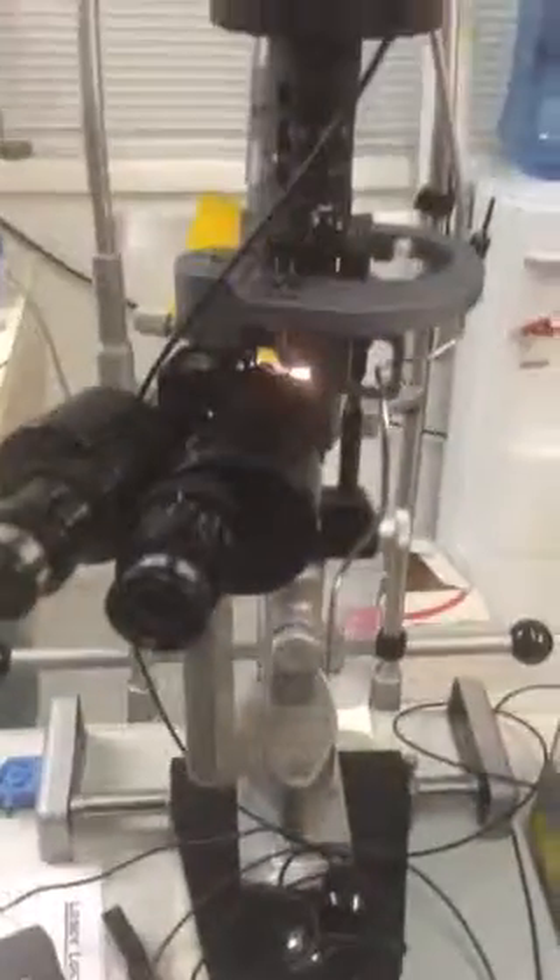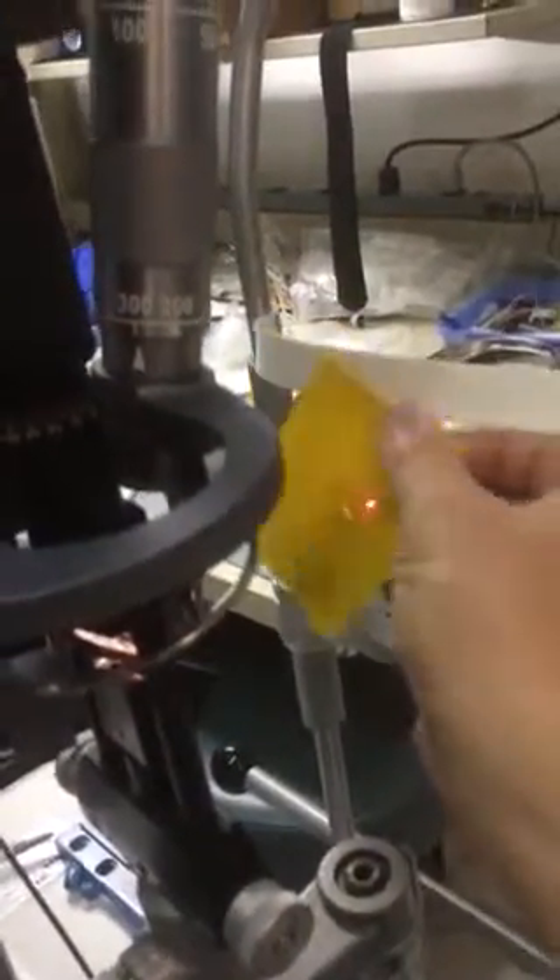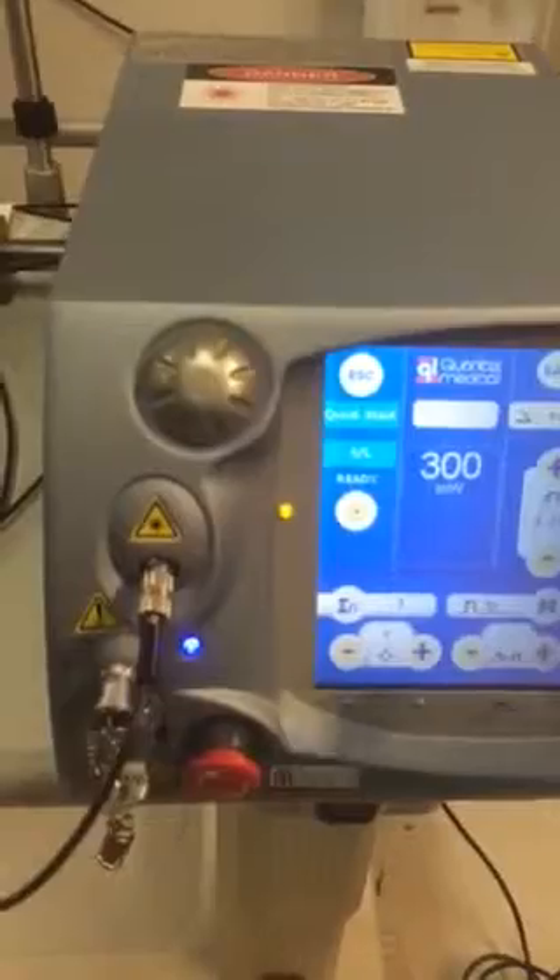Go ready. It's ready. And then when you step on the foot switch — I can't really see it, step back a little bit. It's happening so fast. Let's go up on time — maybe it'll... there we go. See if you'll catch it now.